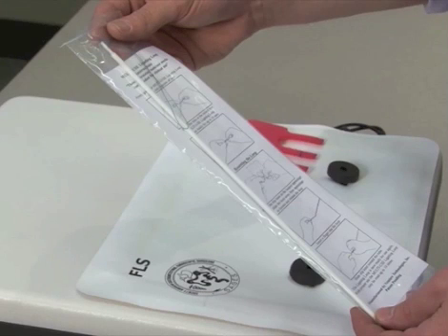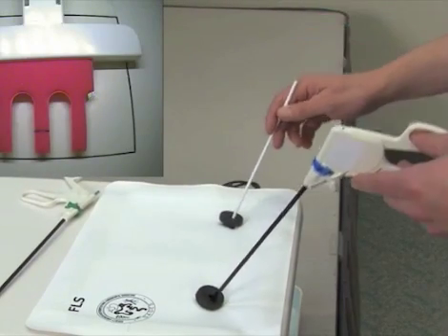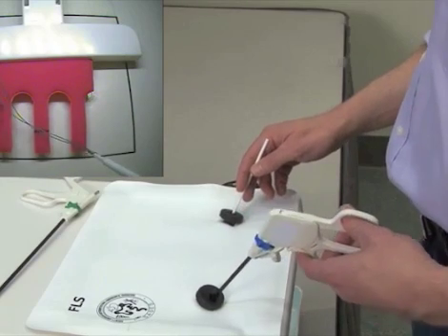Multi-use ligating loop instructions. Note, these are training tools, not sterile and not intended for clinical use. Although this is a multi-use device, the tube can only be broken once.